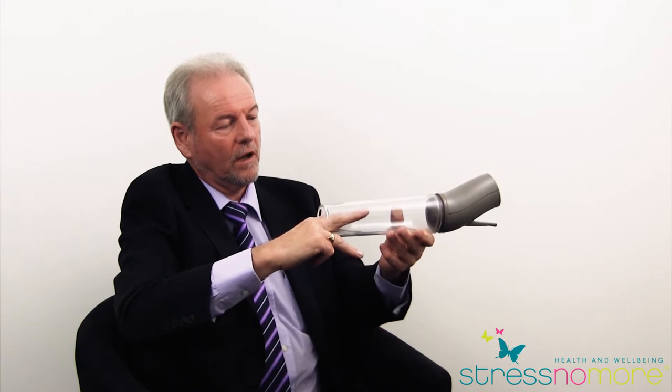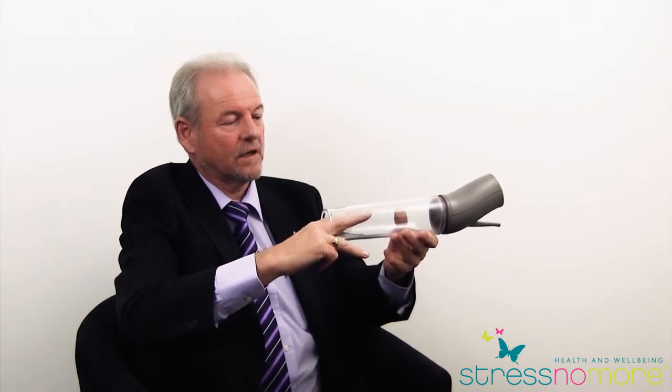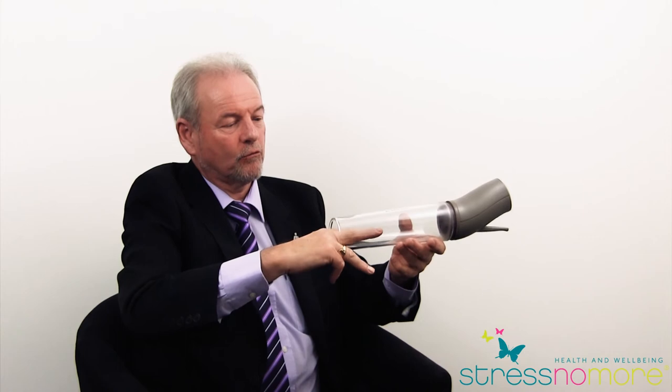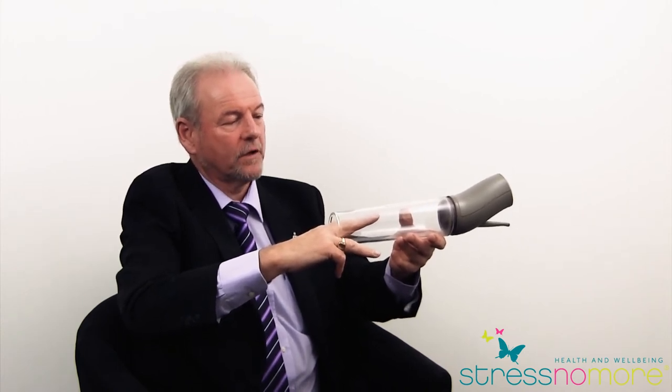As it becomes full like a normal erection, it lifts up. The exercise I always emphasize is getting the penis to this point where it feels tight. There are no medals for bravery — the concept of no pain, no gain isn't what this is about. It's about reproducing that natural filling and stretching and getting that good strong feeling that we get when we get an erection.